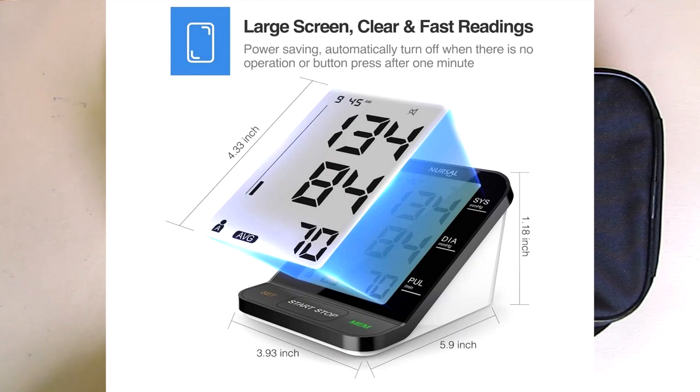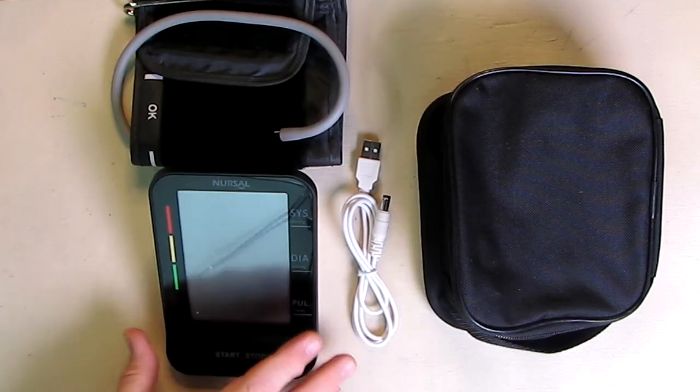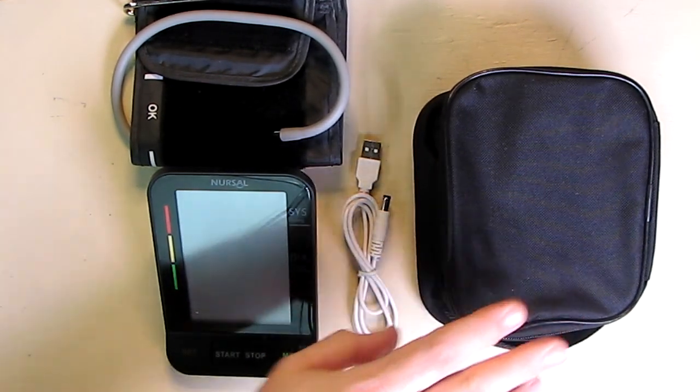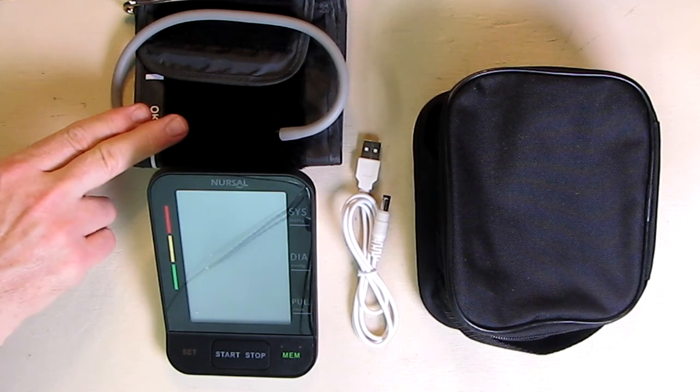We're going to show that. It has a two-person memory and will store 180 different measurements. It comes with a carrying bag and a fit-for-all cuff, very high quality.